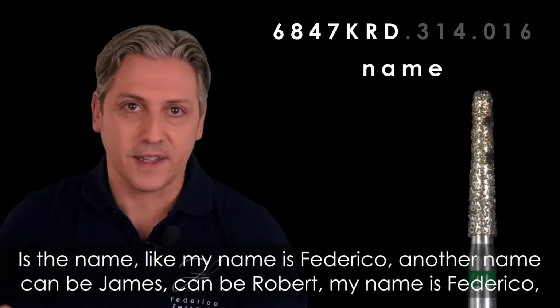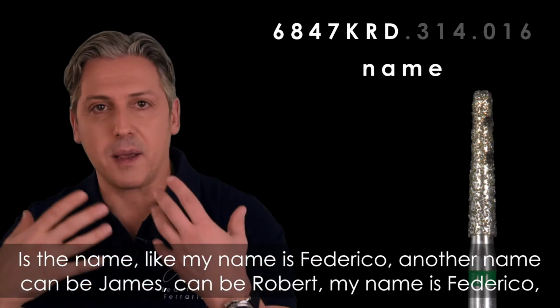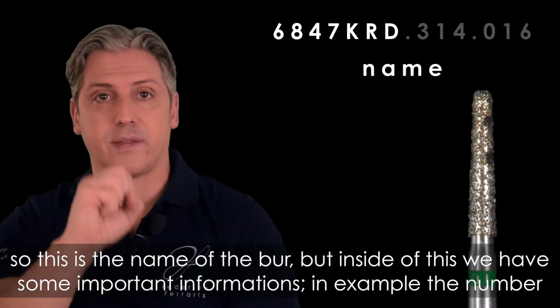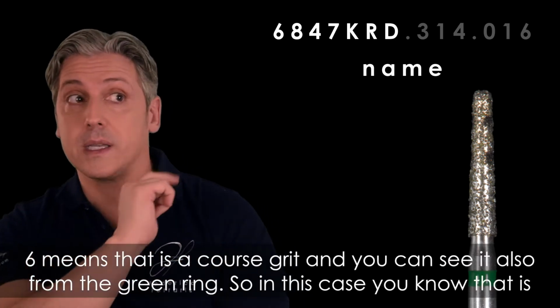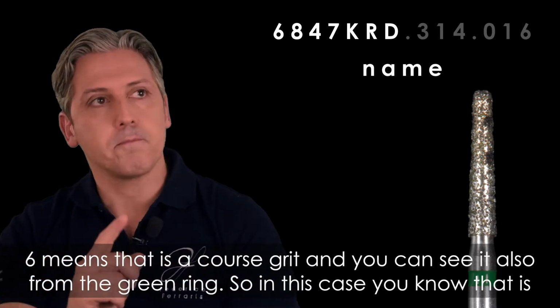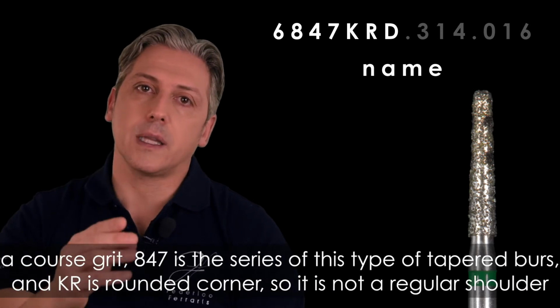Like my name is Federico, another name can be James, can be Robert. This is the name of the burr. But inside of this, we have some important information. For example, the number 6 means that it is a coarse grit, and you can see it also from the green ring, okay? So, in this case, you know that it is a coarse grit.